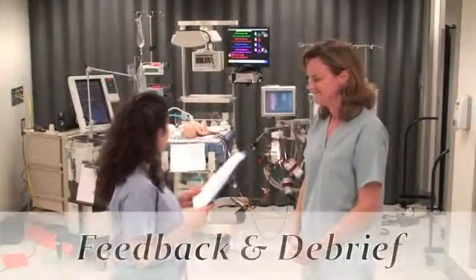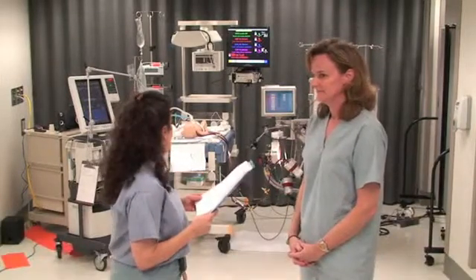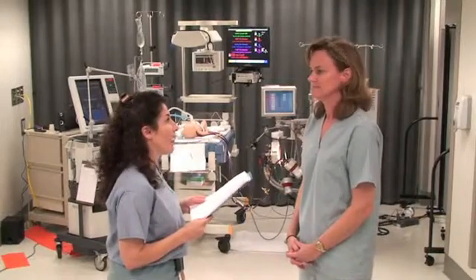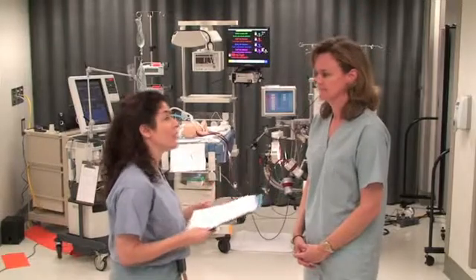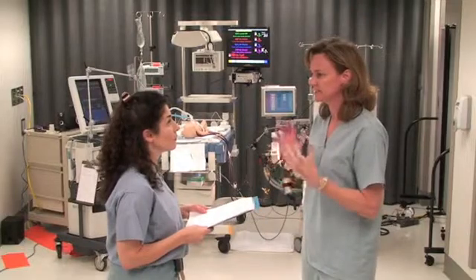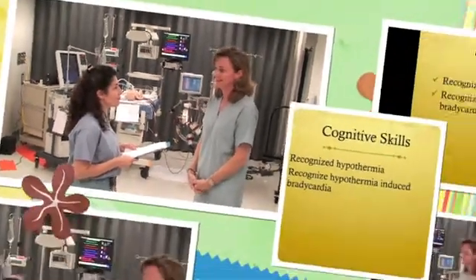Nice job. You recognized that the patient was hypothermic and that caused the heart rate to slow down. You made some interventions to help the patient warm up, and you also checked your circuit to try to find the source of the temperature irregularity. How did you feel it went? I thought it went pretty well. It was a good way to check the systems and all the equipment to solve the problem.